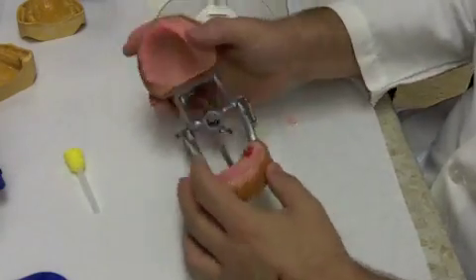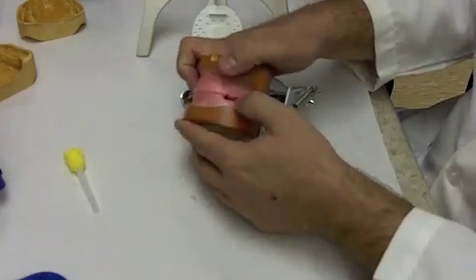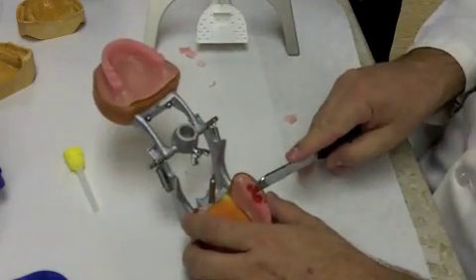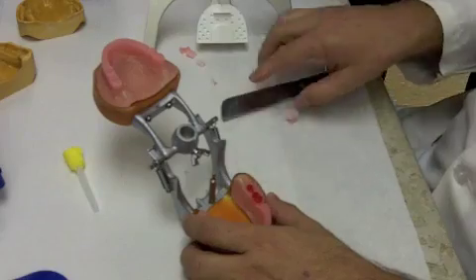So what we've done on this one side as far as establishing, again, the 2 notches on the maxilla, a little space cut away from the mandibular rim in this area, the 2 red wax cones.